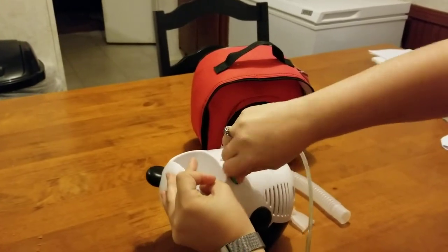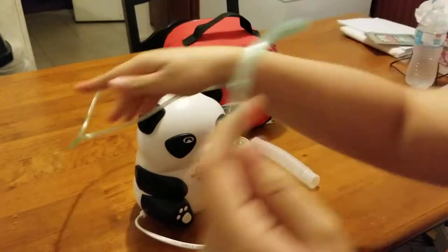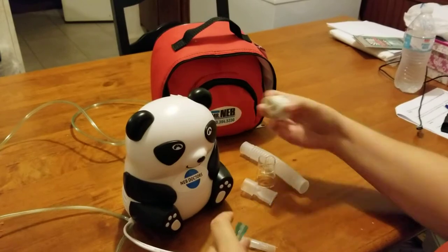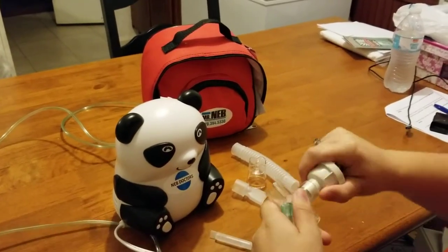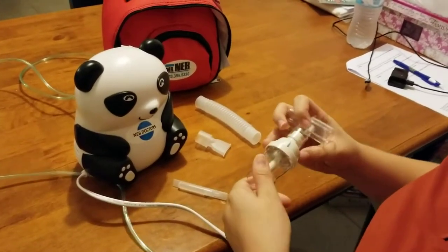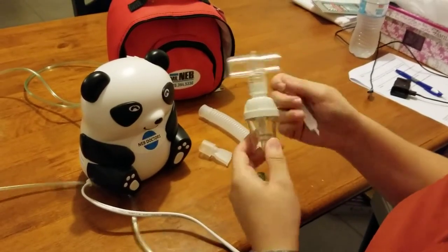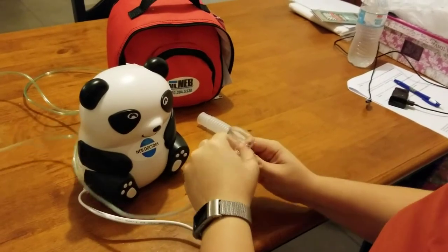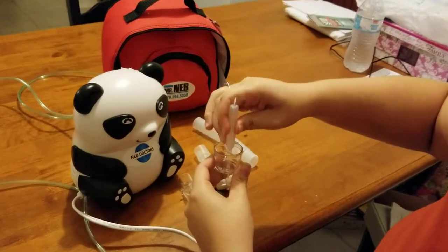This goes on here, and this will go in here, but this medicine goes in here as well. So we open up the medicine and put it all in here.